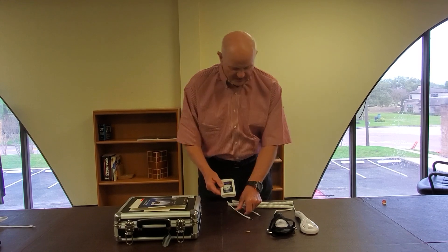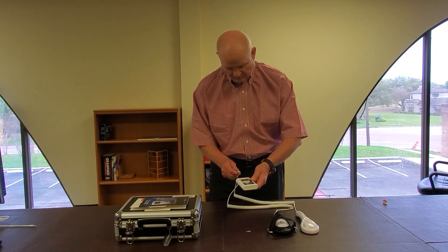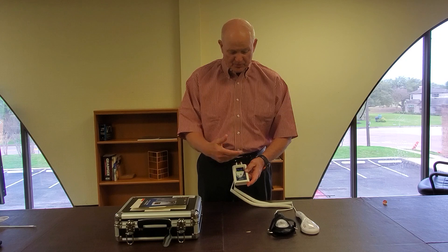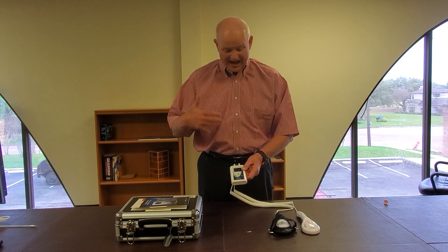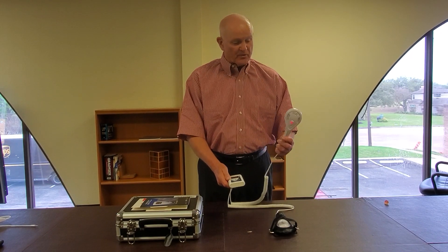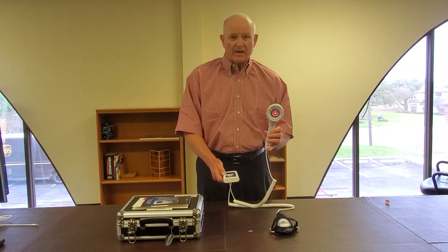It's now time to plug in our laser probes. We'll plug the laser probes into the outer ports. We now want to turn the laser probes on, so we hit the 12 o'clock button, which activates the laser probes. You'll see some flashing on the back of the laser paddle and a red light on the front.